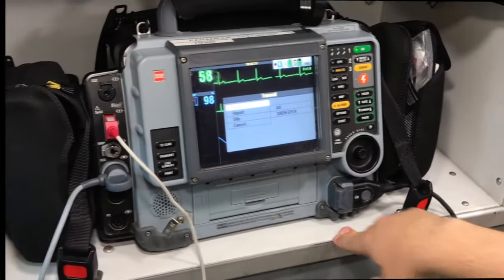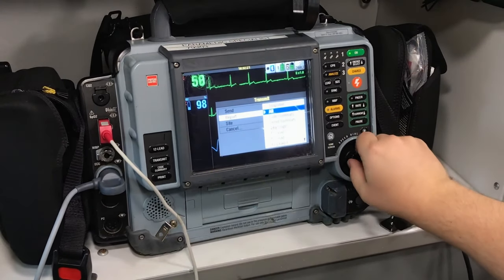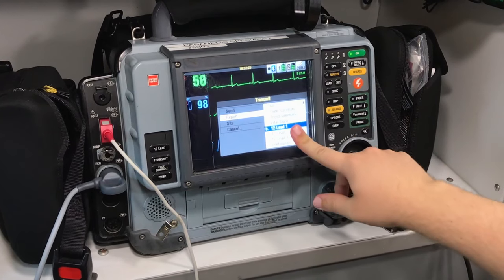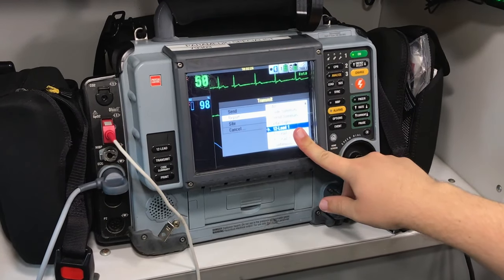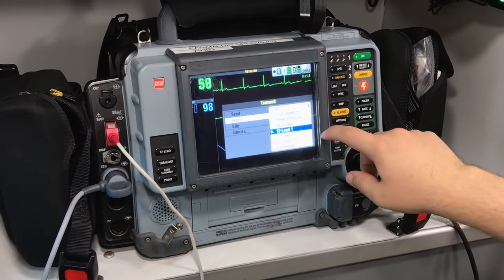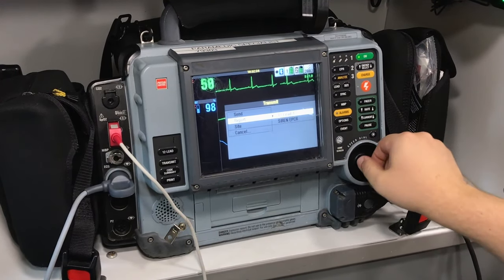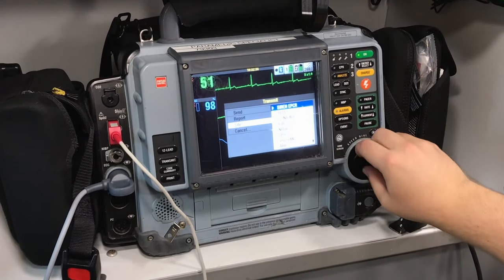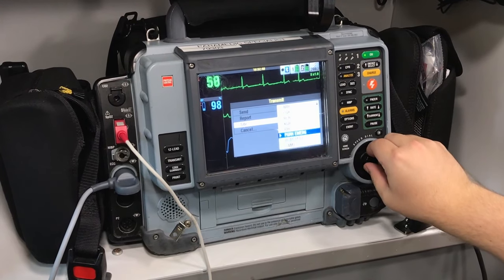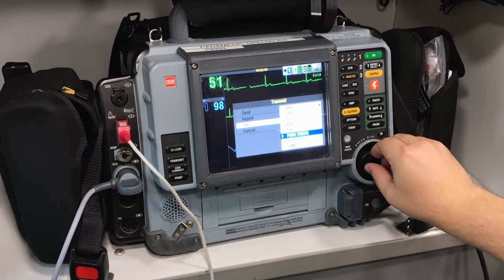Now we're going to hit Transmit, then Report. We're going to choose the 12-lead that best shows the STEMI. Or in the case of multiple leads, pick the 12-lead first that shows the STEMI, and then subsequently right-sided or posterior. So for this one, we're going to select 12-lead one. Find the correct hospital — in this case, Royal Inland — but we're going to send to test.